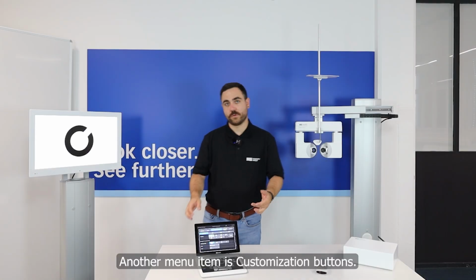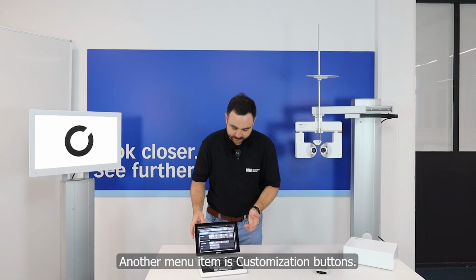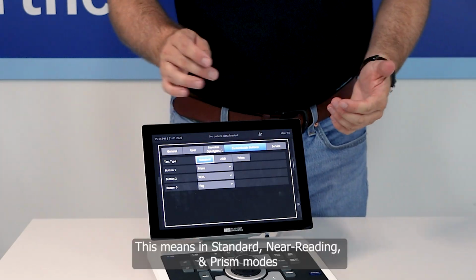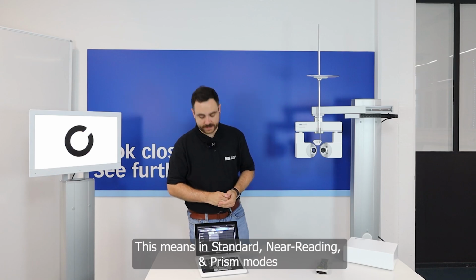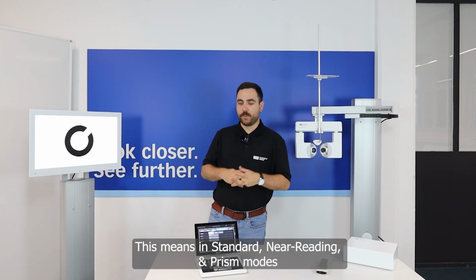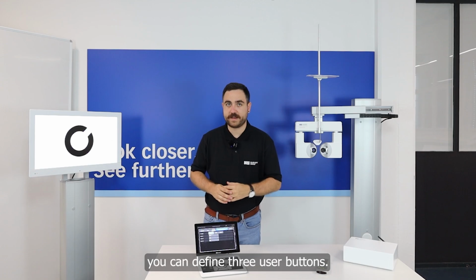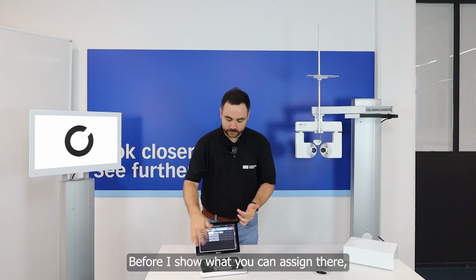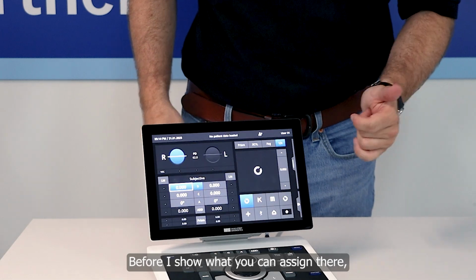One last thing you can define in the menu is the customization buttons. It means that you can set in the menu standard, near reading and also in the prism mode that you can define 3 buttons on your own. But before I will show you what you can set there, let me show you the buttons.